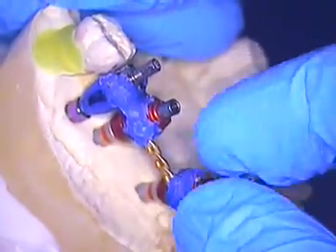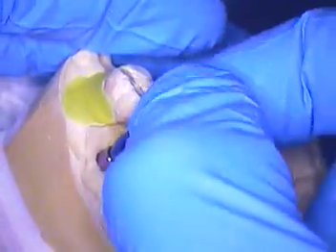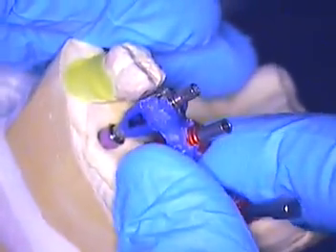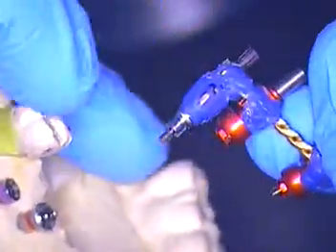These are the actual impression copings as I took them out of the impression. I want to show you how perfect this fit is — still, a year later — when I decided to pull it out of the impression. I literally just pulled it right out. So here's the apparatus, or as I call it, the assembly.